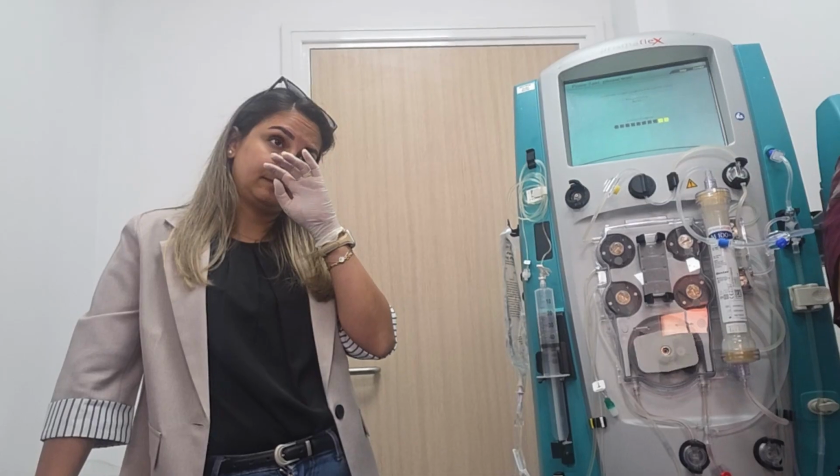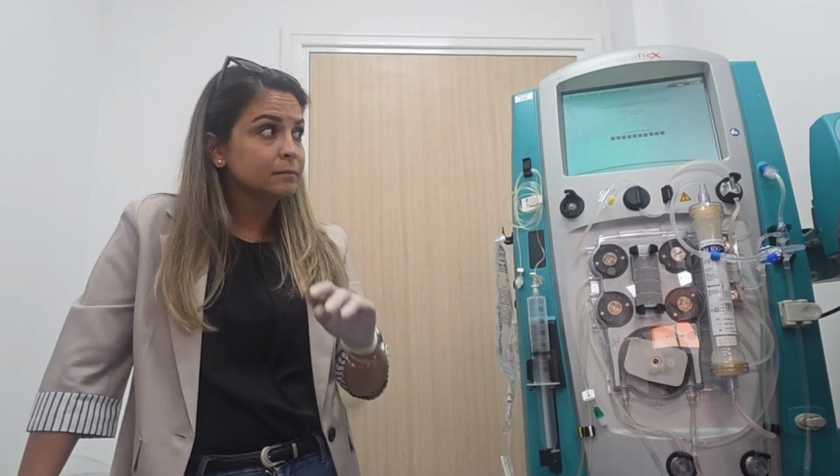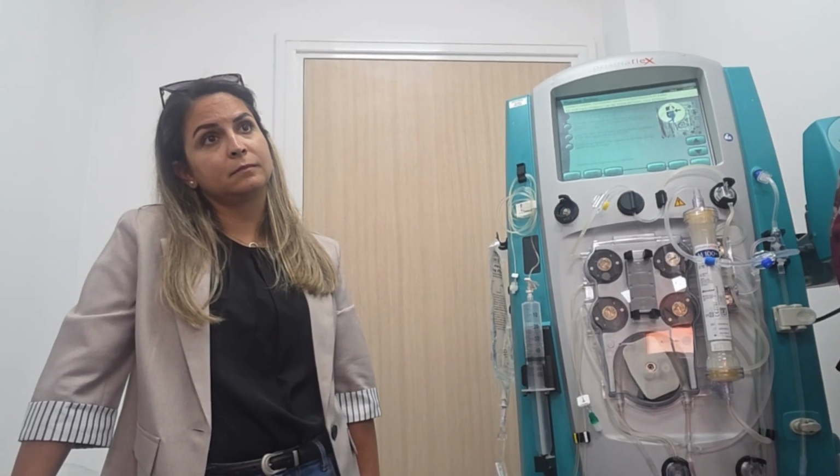If it takes more than 2 hours, within 4 hours, the doctor says do the priming and start the same thing. But the policy says we always discard. That's what I learned. I don't know whether they changed it or what.